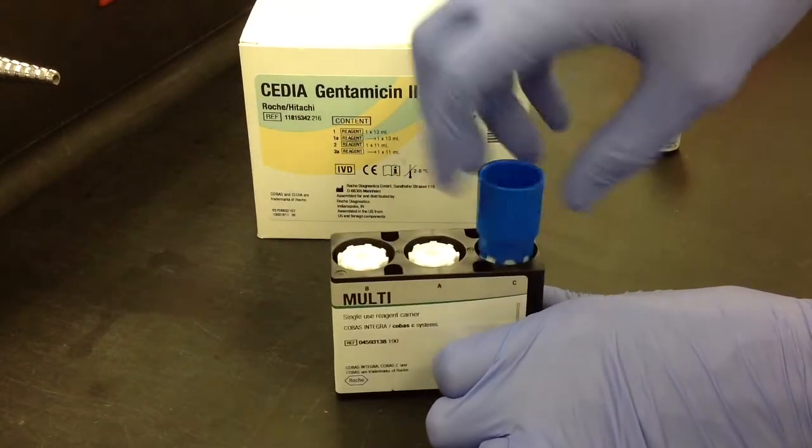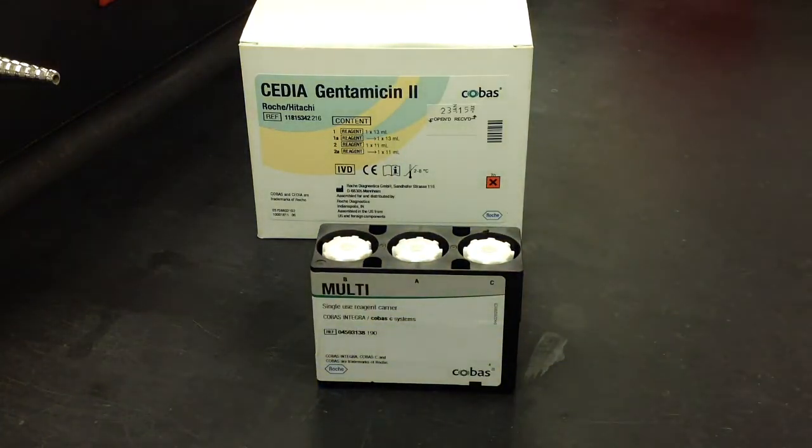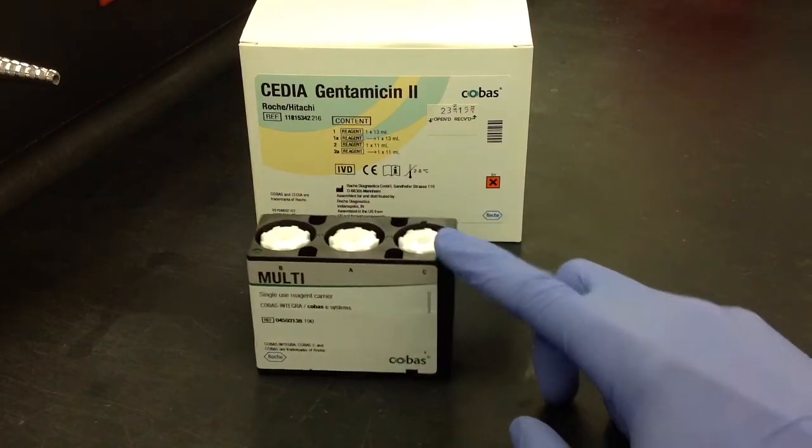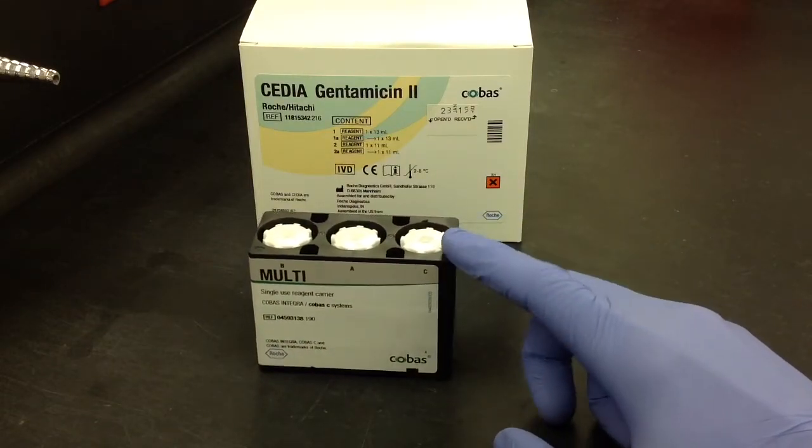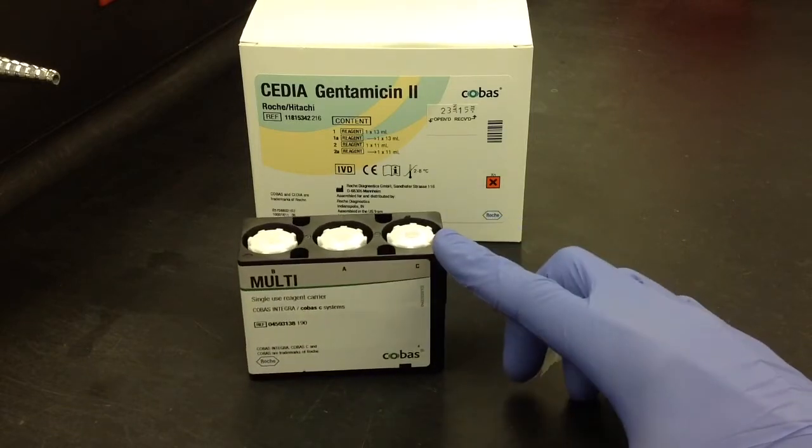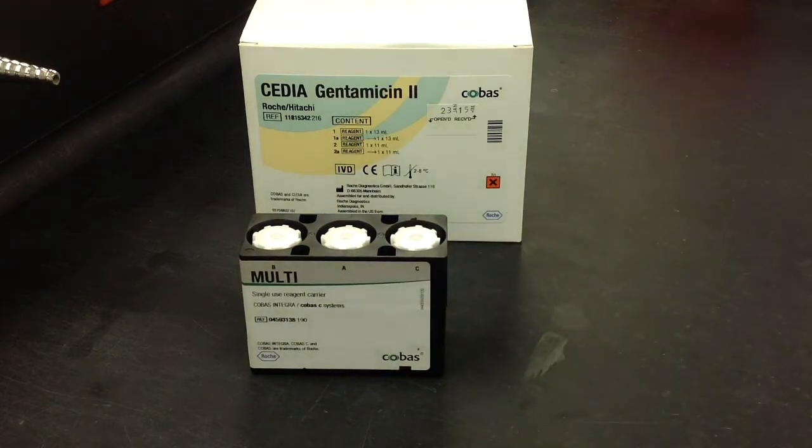All right, then after that, you're just going to go ahead and put the last cap back on the cassette. And there you go. Now, the instructions recommend that you leave this cassette before use in refrigerated temperatures for 30 minutes, either inside a refrigerator or inside the actual machine itself before use.